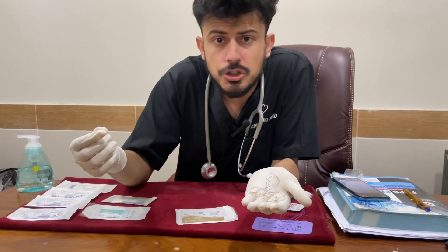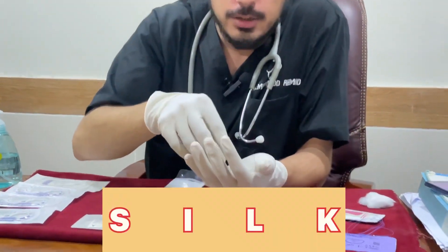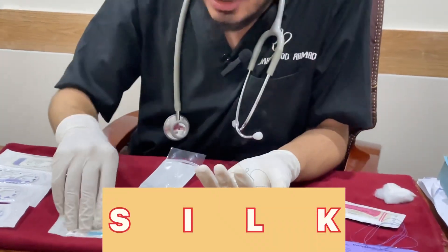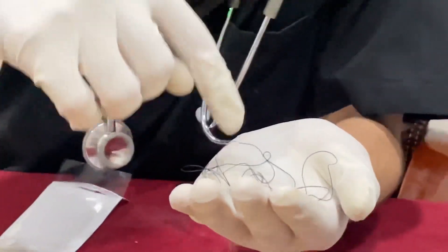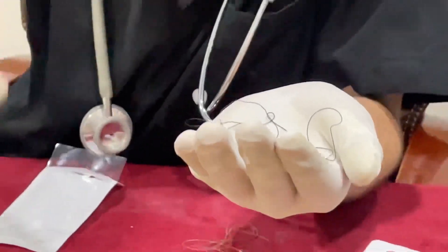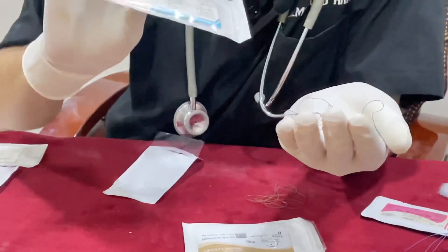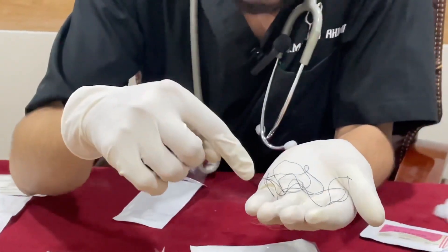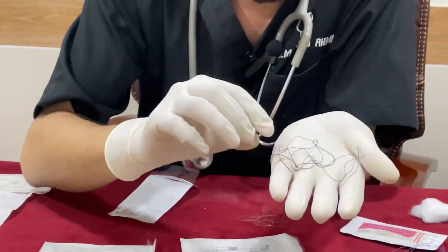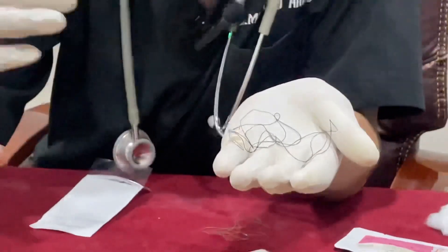This is known as silk suture. The packaging is blue while the suture itself is black. To repeat: how will you identify the silk suture? The packaging is blue while the suture itself is black. Silk is usually used to ligate blood vessels.